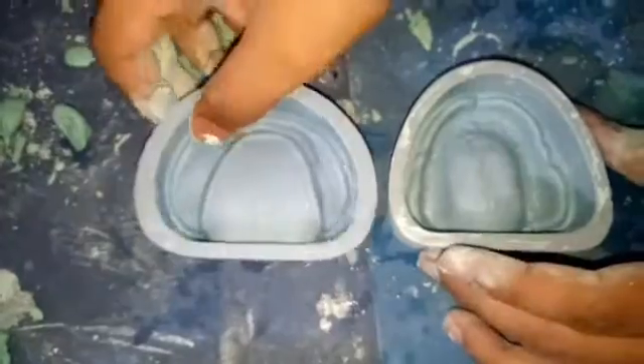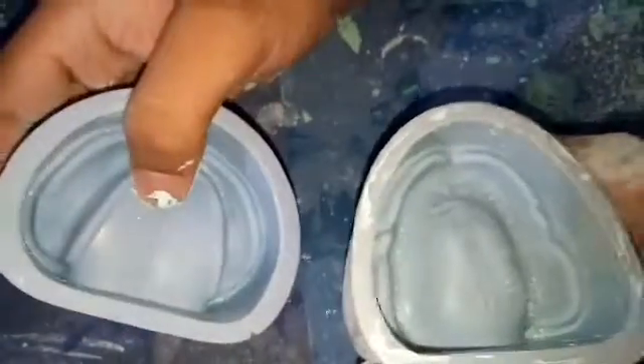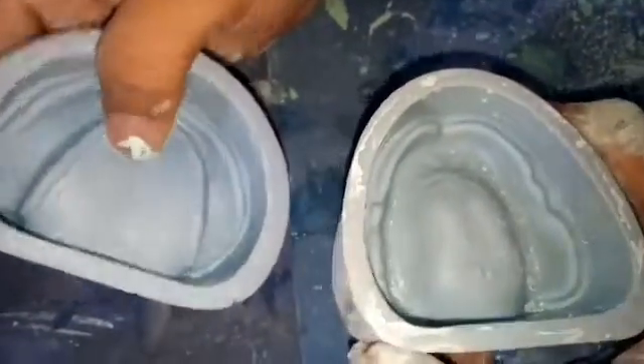Now, two very very important things — this is the mandible mouth and this is the maxilla mouth. It is very very important to make the mold of the upper and lower jaw.